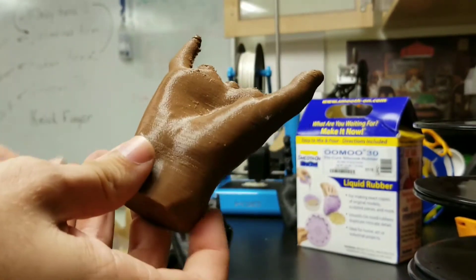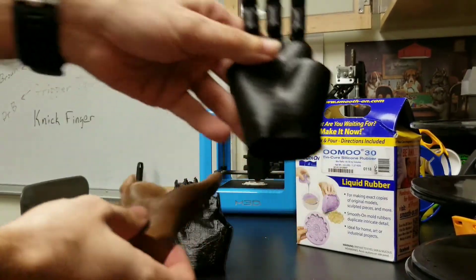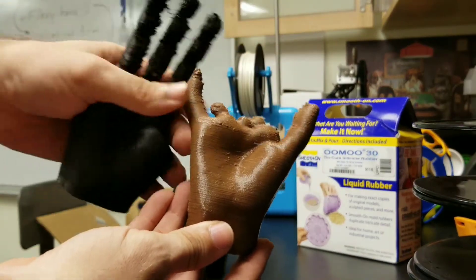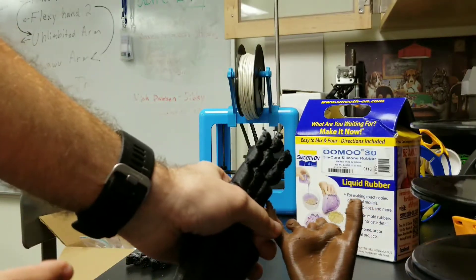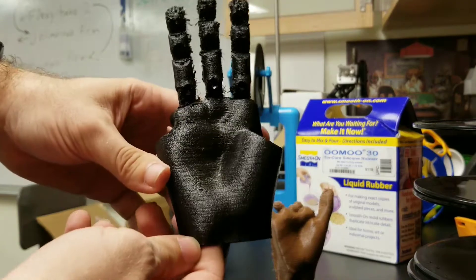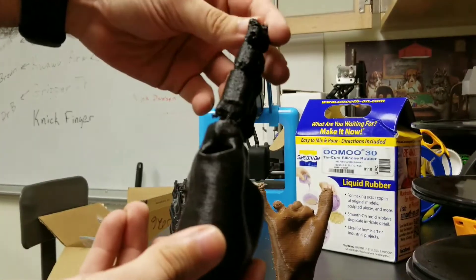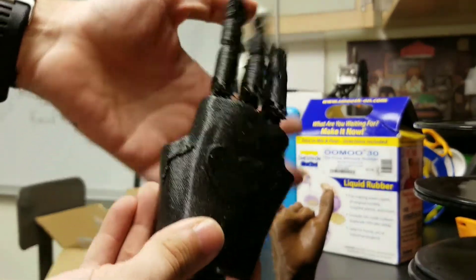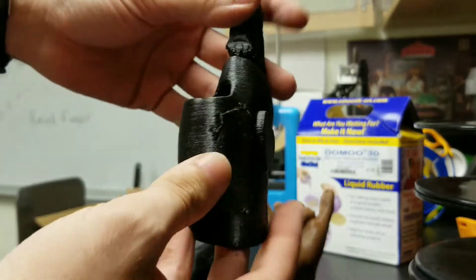What we're working on in my lab is something like this. We've taken the 3D scan and molded a customized gauntlet around it using a free program called MeshMixer. This is our first result — we get something out and we have fingers. These are basically flexi fingers that we attached onto here. This particular recipient likes hearts and wanted a heart on their hand, so we did that.